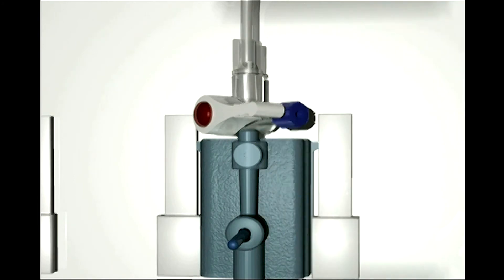Now that we have completed priming the system, we will need to calibrate the TruWave transducer with a bedside physiologic monitor. Use the following 7 steps.